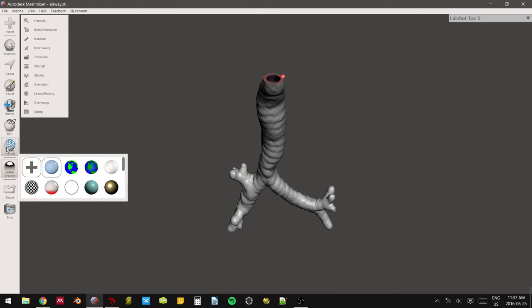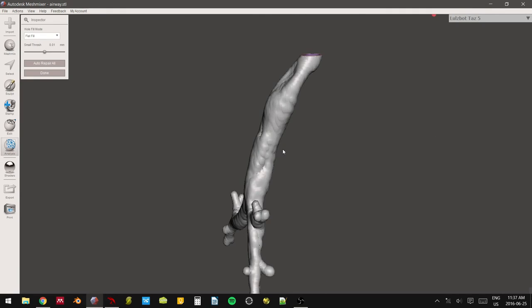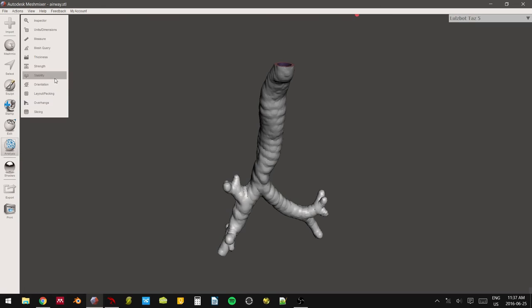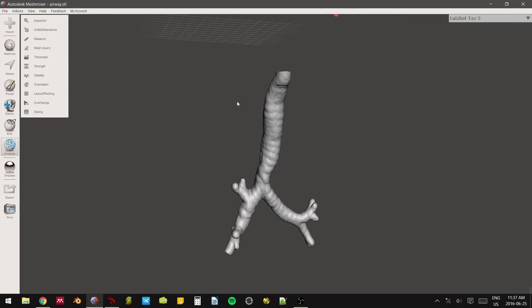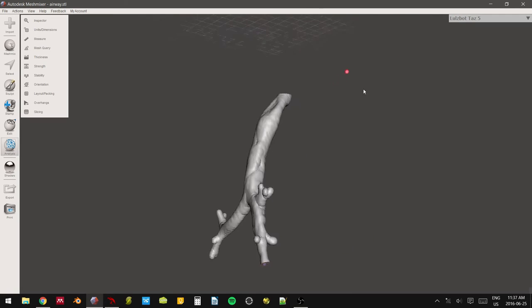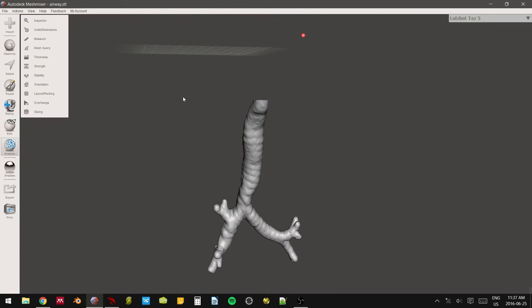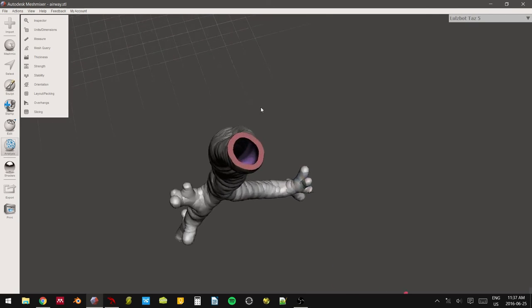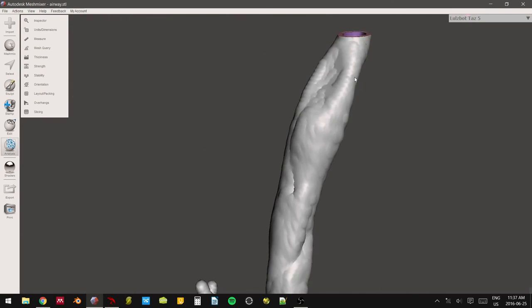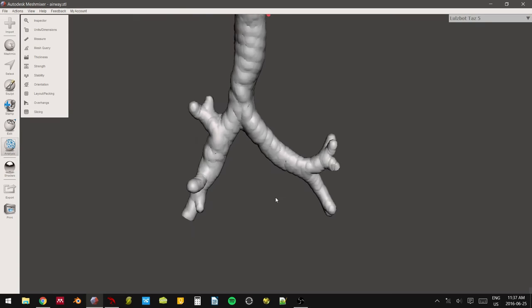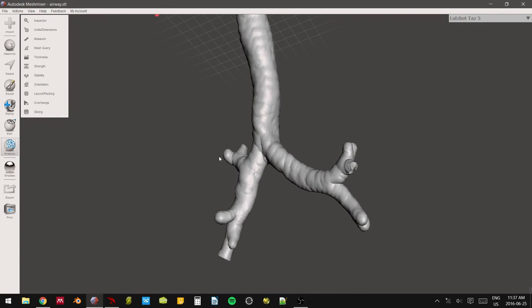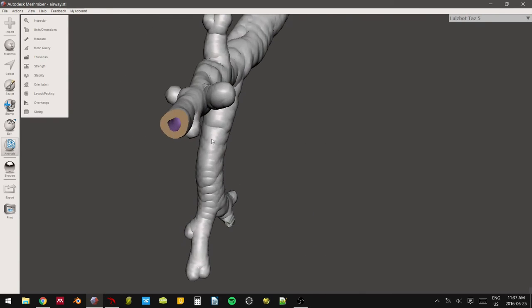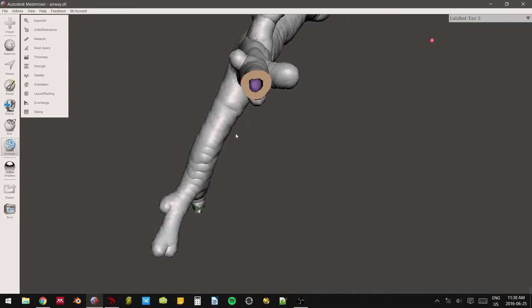So last thing before we slice for 3D printing, or I guess second last thing, we inspect. So we just inspect. Our model is good. Okay, now comes the somewhat tricky bit that is actually rather difficult for me to explain. So when we're printing this model, it's actually really rather difficult because A, it's hollow, and that automatically adds a level of difficulty. And for the printer anyway, and for you as well, set it up geometrically. And B, because of support generation.